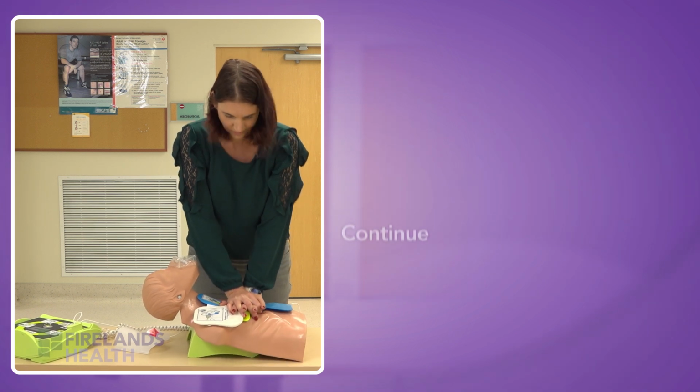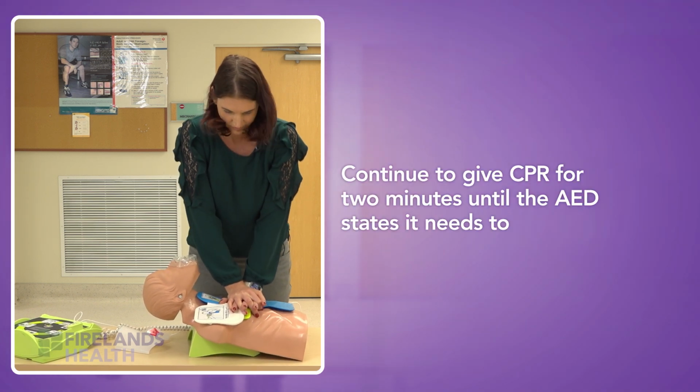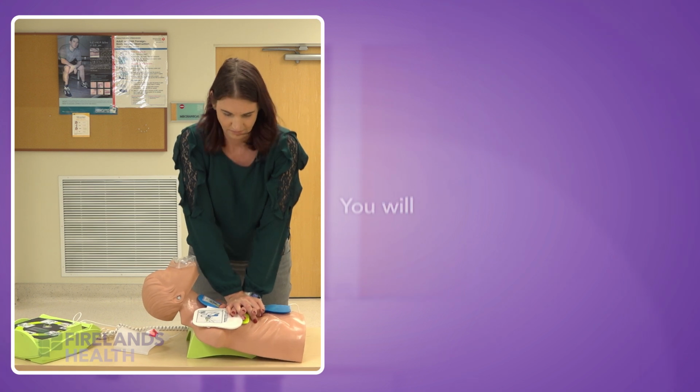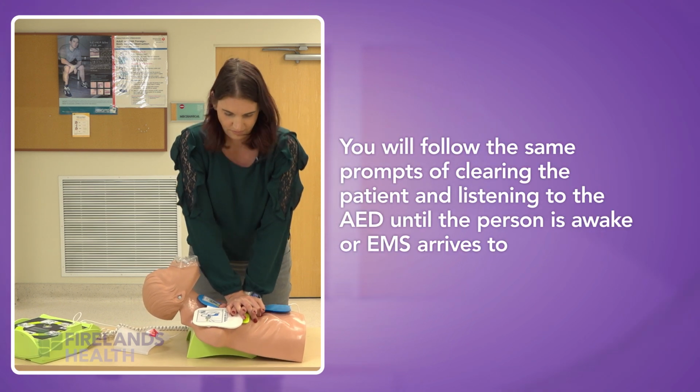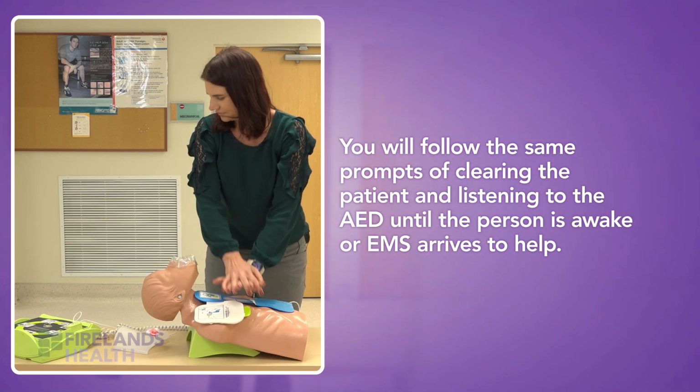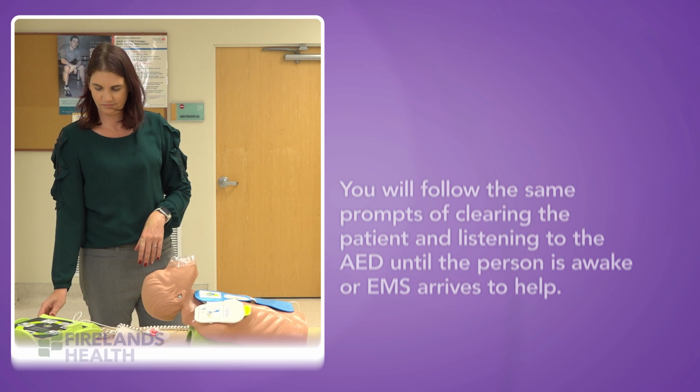You will continue CPR for 2 minutes until the AED tells you that it needs to reanalyze. Then you will clear the patient and follow the same prompts again. You will continue this until the person is awake or emergency services have arrived to help.